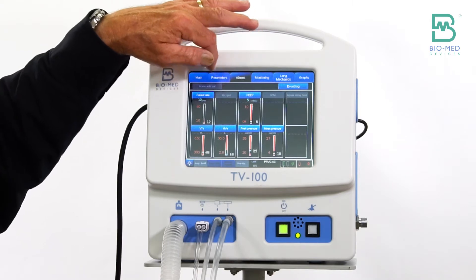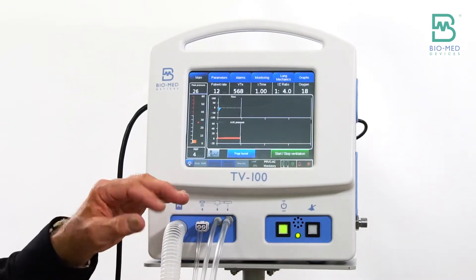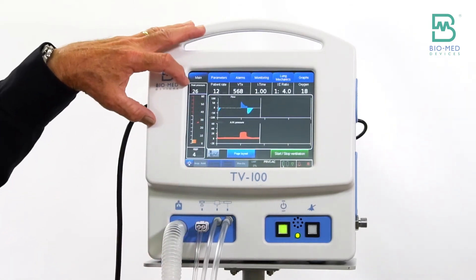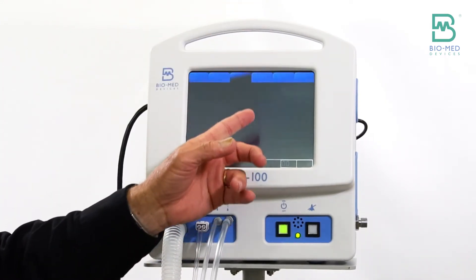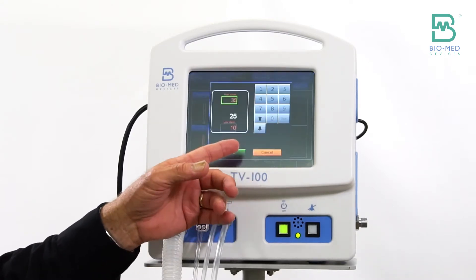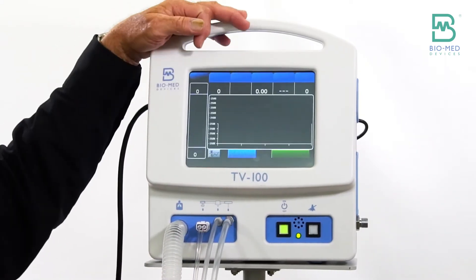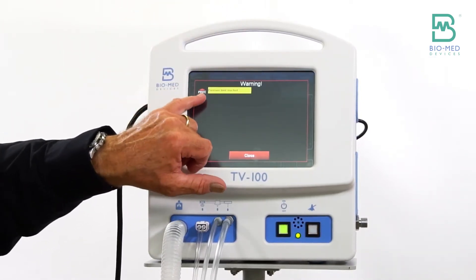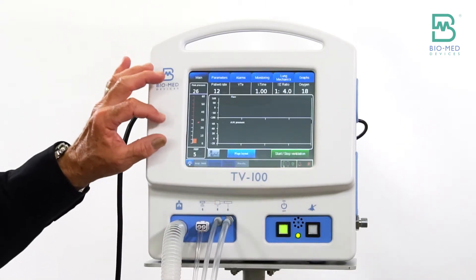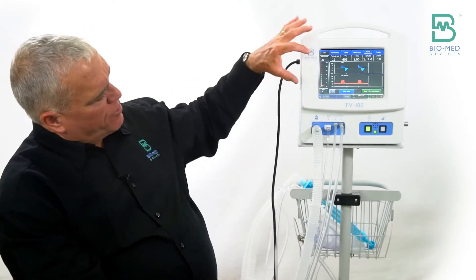What we decided to do is that doesn't really make sense, because right now it's taking me 26 centimeters of pressure to deliver my volumes. So if I set my alarm at say 30, what we do is we bring up this PRVC alarm — 'pressure limit reached' — whenever we get within that range. So I'm at 26, 28 centimeters — I'm within five.